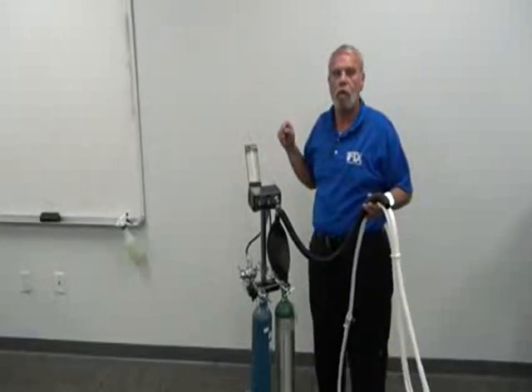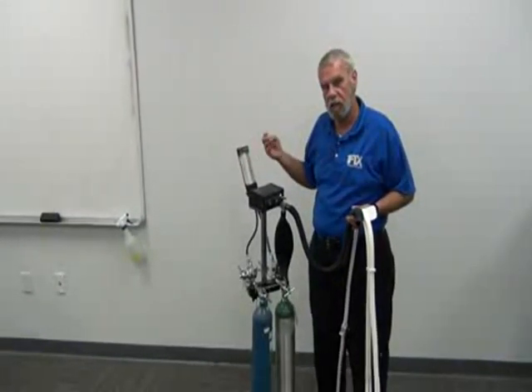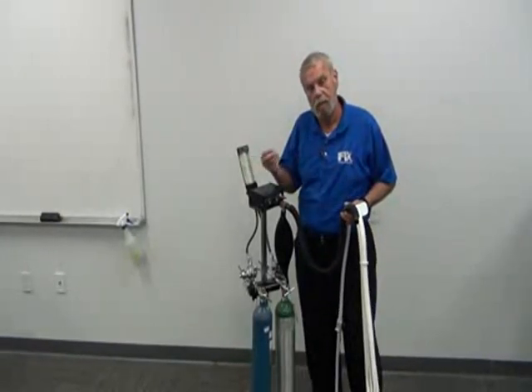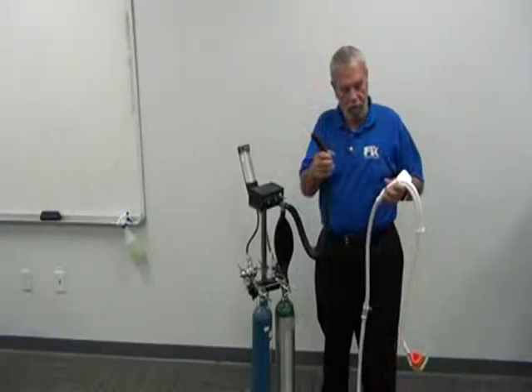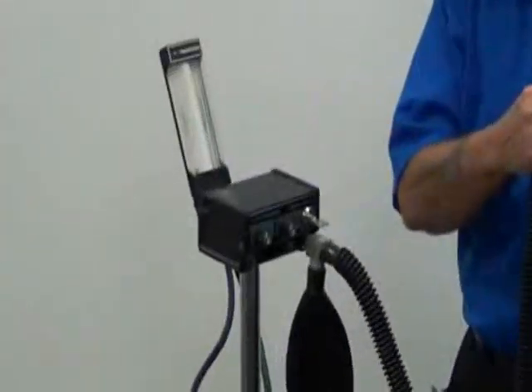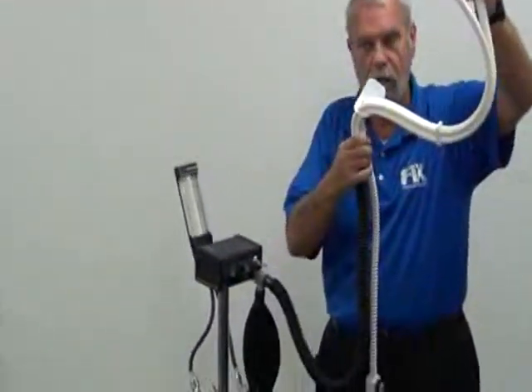This allows you to dose the patient without having the machine right up to their head. This gives you a little leeway where you can turn the machine and read the machine. The doctor can turn the machine and read the machine and make sure the dosimetry is right before the patient breathes the gas, the mixed gas. Your corrugated breathing tube carries to the rubber goods, and it's easy to see why they're called rubber goods, because they're made of rubber.